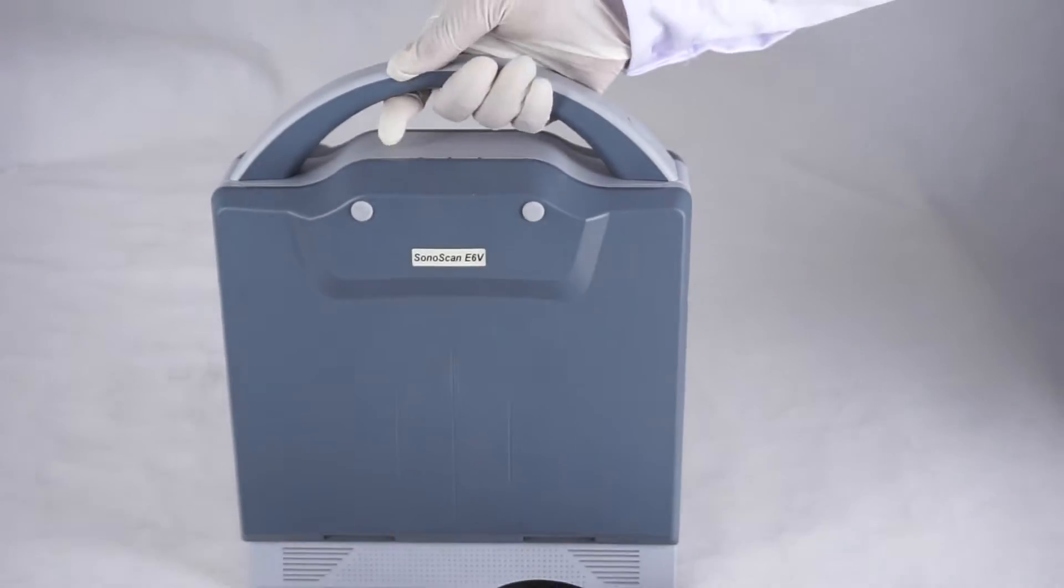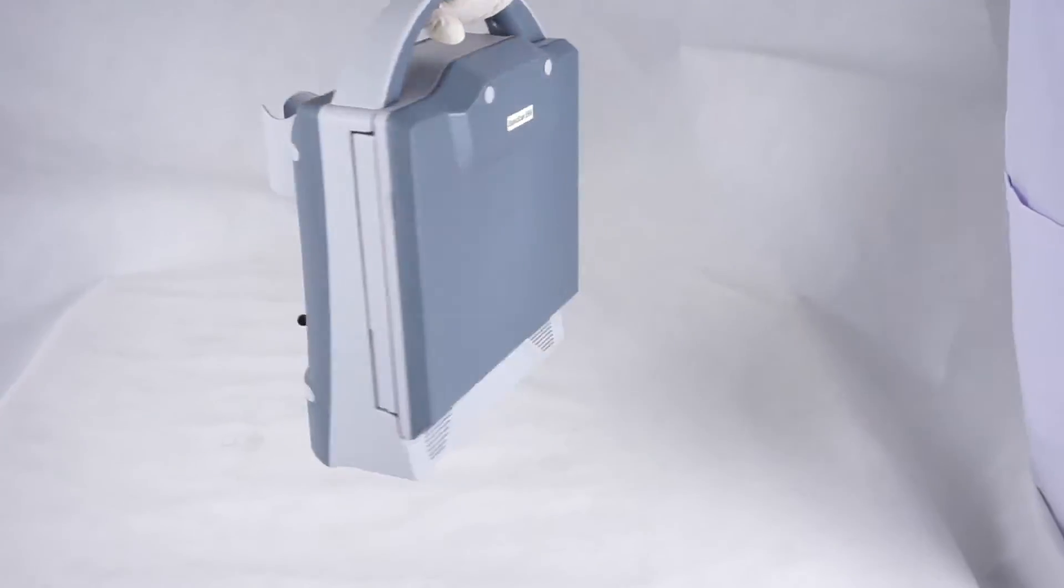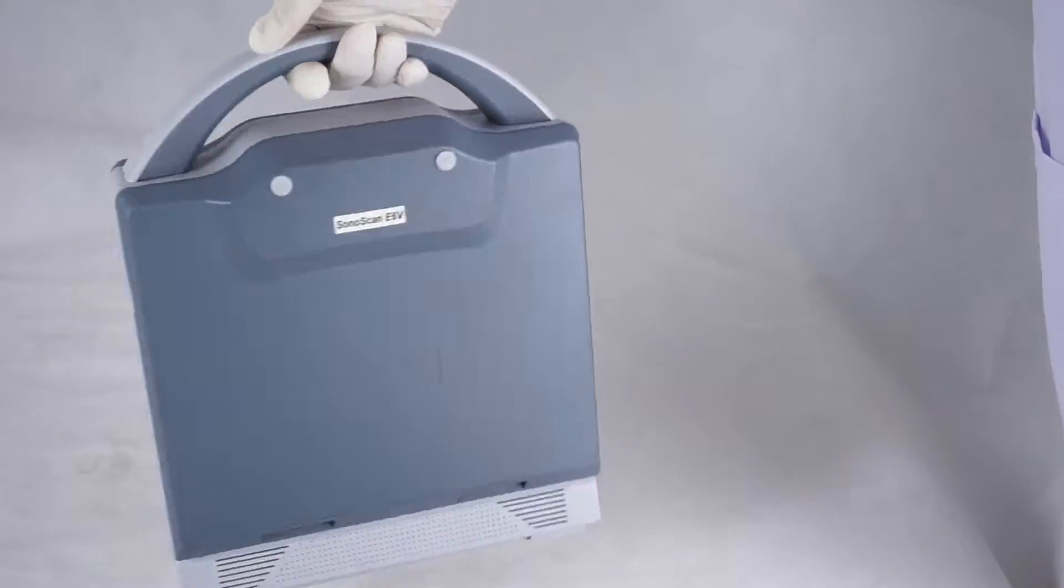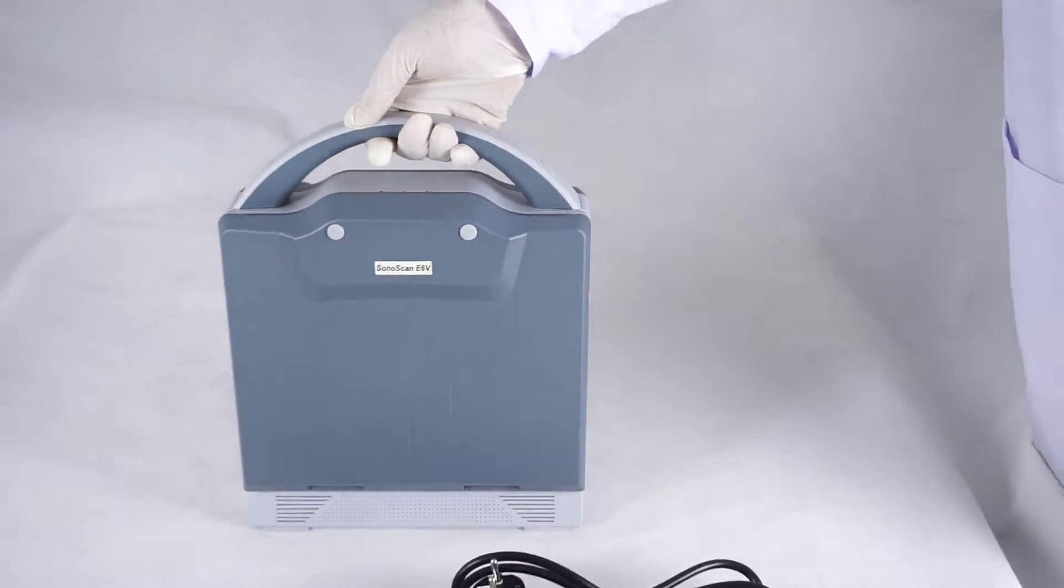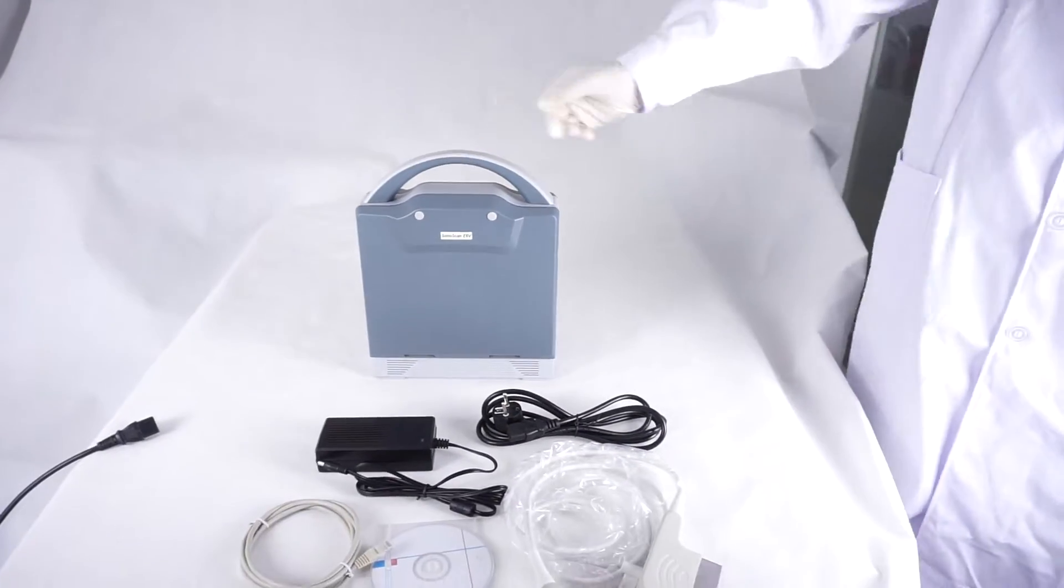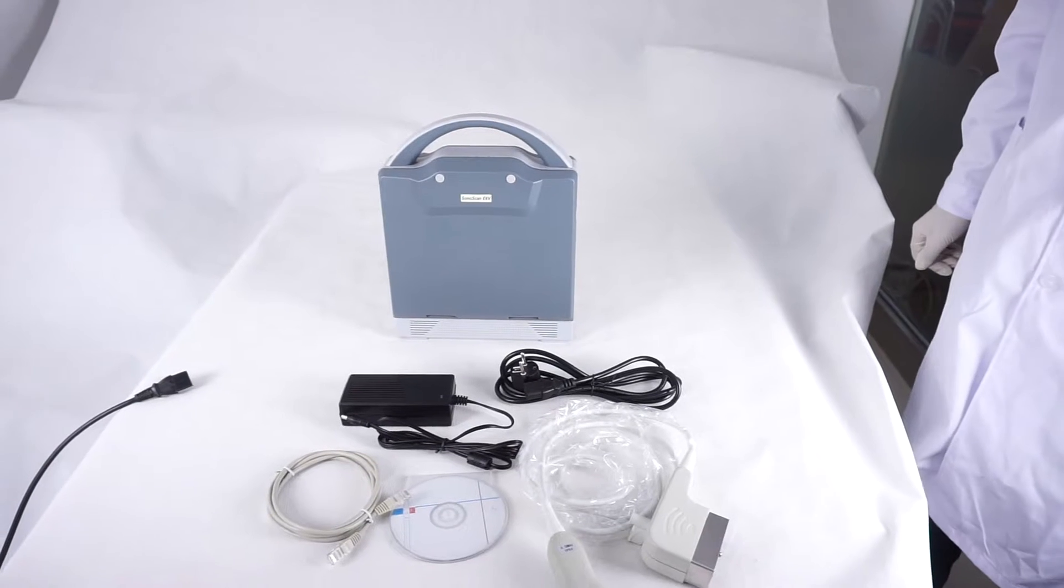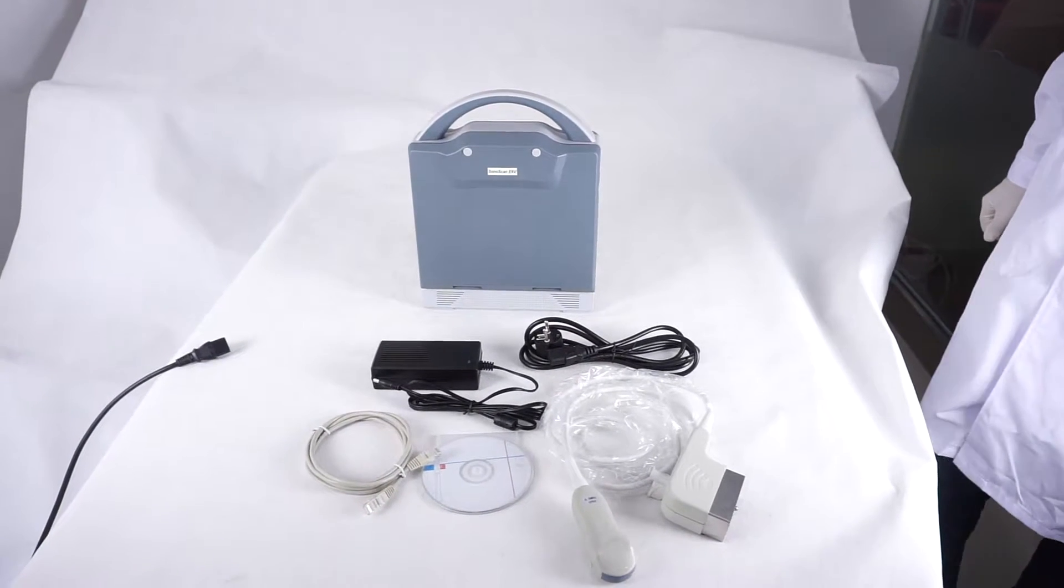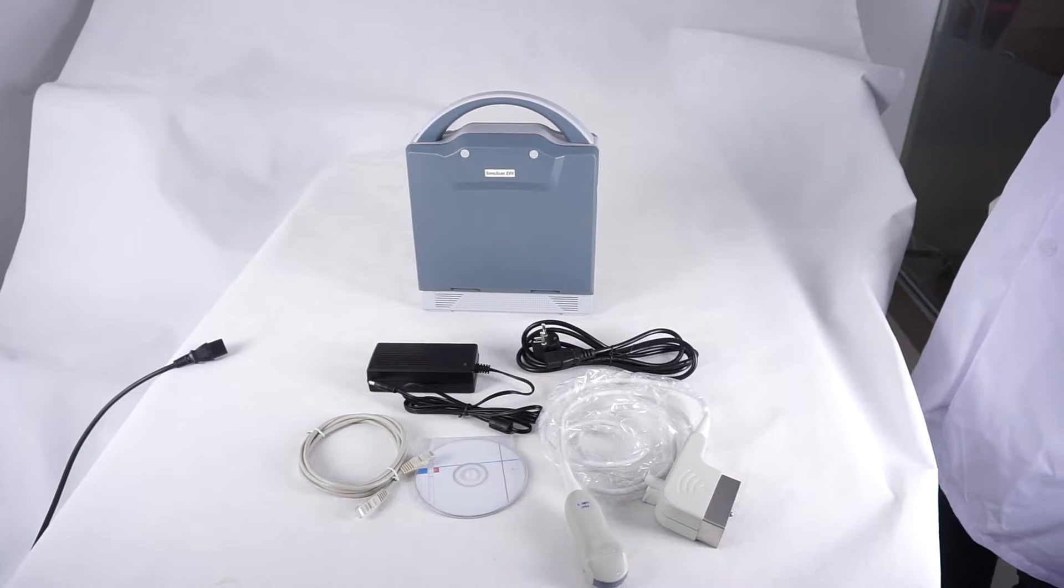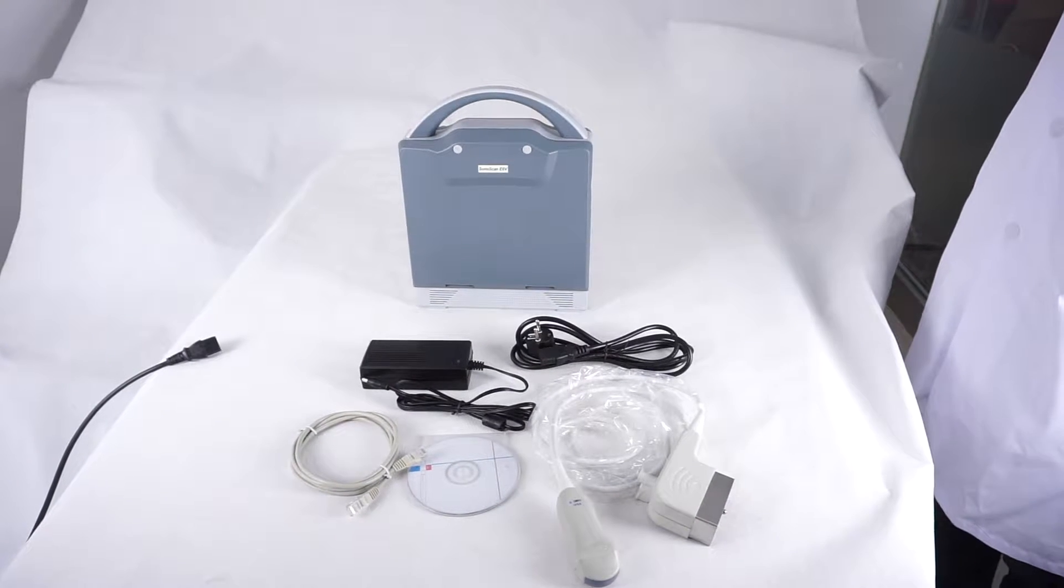Let's take a close look at this machine. Beautiful design. The weight of the main unit is about 6.5 kg. You can take it and use it outside.